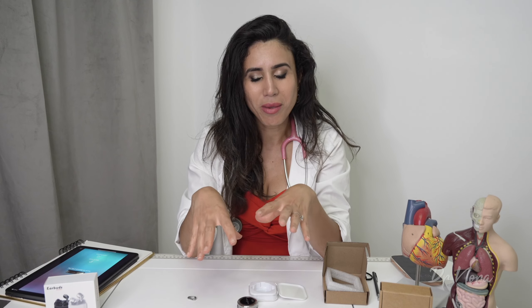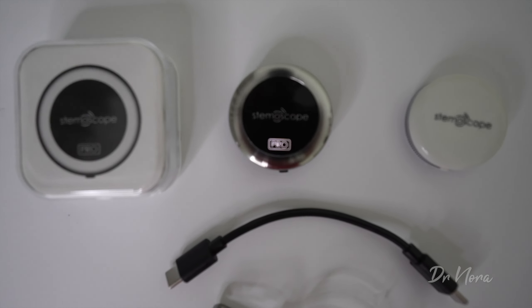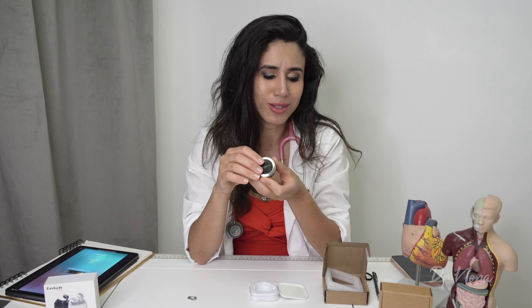So far I'm really quite impressed, because aesthetically this looks so much fancier than the original. It automatically feels a lot richer and more opulent, given that it has a nice stainless steel finish which means it's probably going to last you some time if you are doing your rounds on the wards.